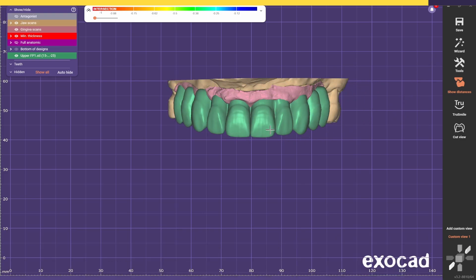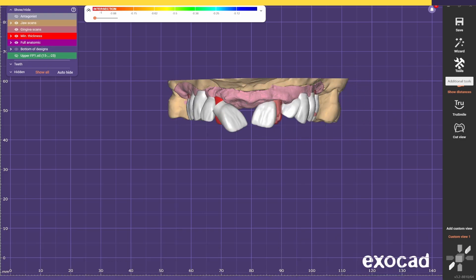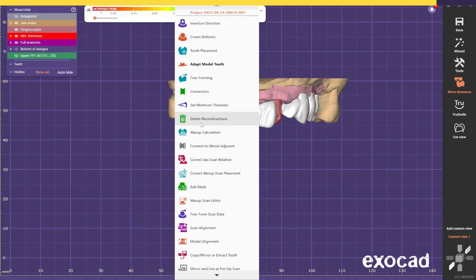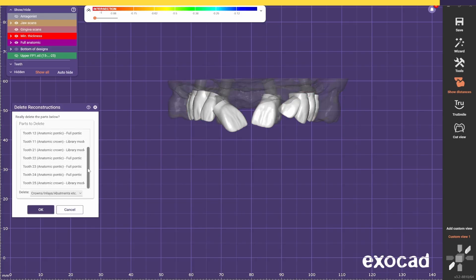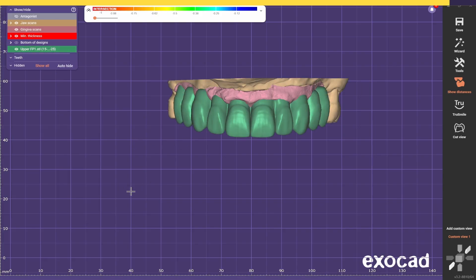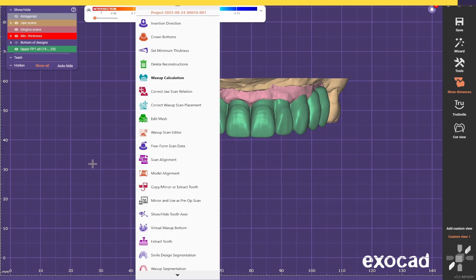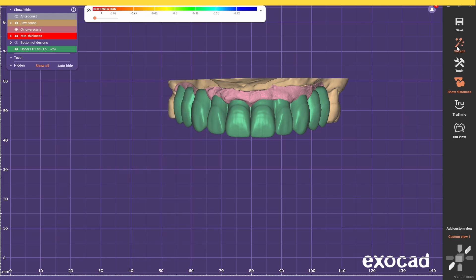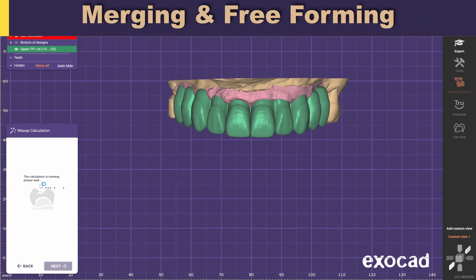Now I just need to delete these teeth. You right-click on the background, select Delete Reconstructions, and as you can see you have all these library teeth and full pontics — just press OK and it's going to delete them. Now we only have the waxup. Because we deleted the teeth and brought the waxup scan, if you right-click on the background you'll see that the next step is Waxup Calculation. Whenever you have a highlighted option it's because it's the next step in the normal workflow. So if I go to Wizard, it's going to automatically do the waxup calculation.